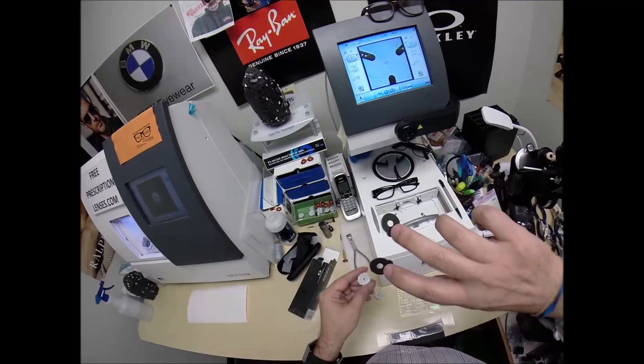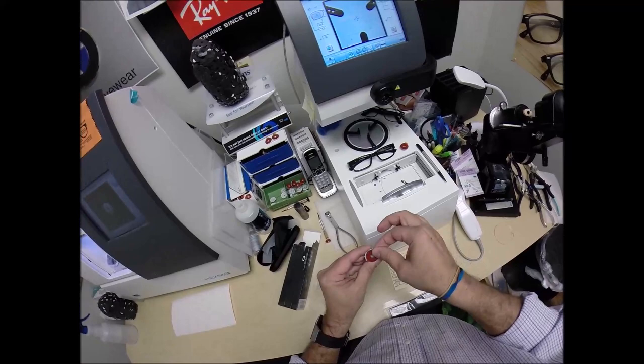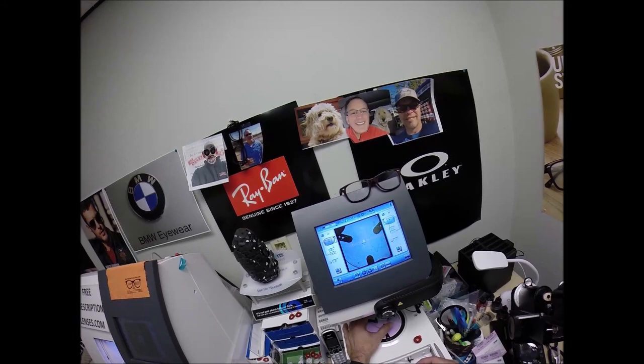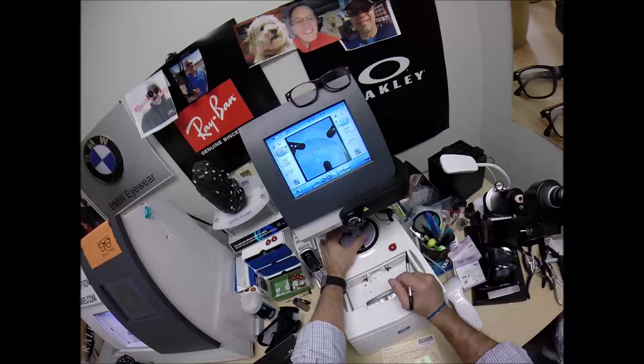Alright, I'm going to reach in there. So this is the block or as I like to call it Jenny from the block. I need to attach two double-sided adhesive stickers to them of which I've got. As we say here in the Dirty South or as I say here in the Dirty South. I'm going to place the black side, the sticky side, that's why it's sticking to my fingers. I do not have a magnetic personality so I have a radioactive personality. Pull the paper away to make the black side sticky, line up the magnet on the back.